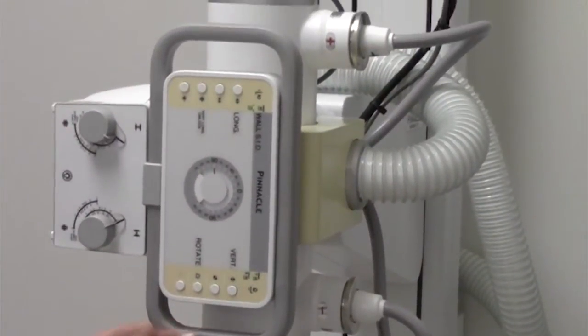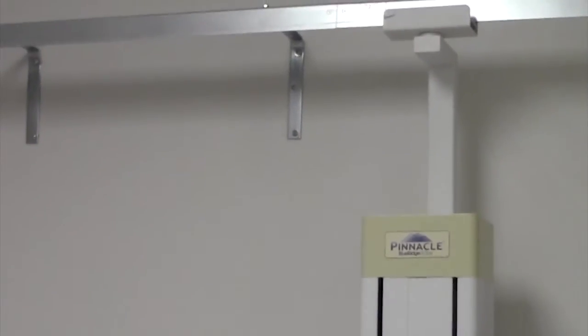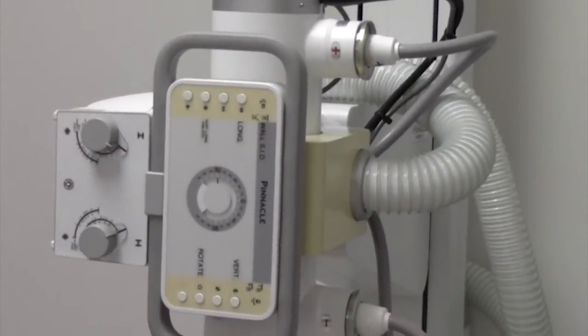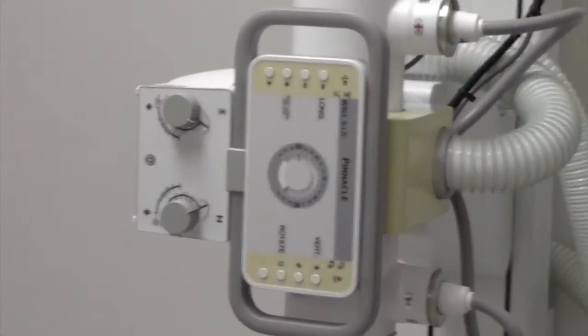72 inch and 40 inch indicators by LED also can be manually installed. 72 inch is for chest x-rays and cervical spines.